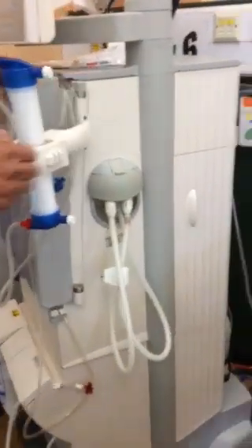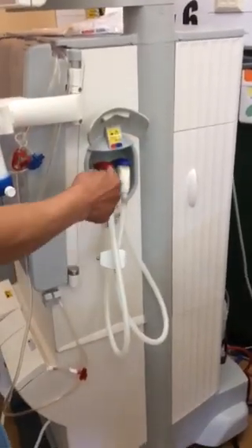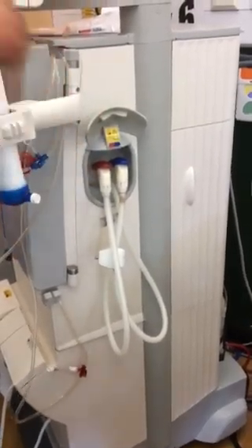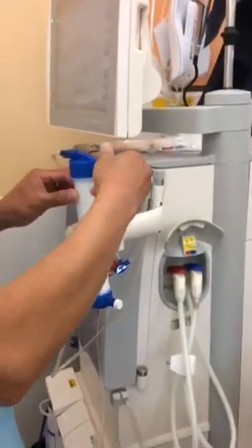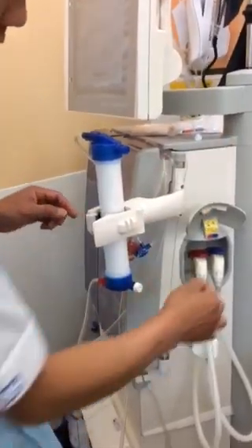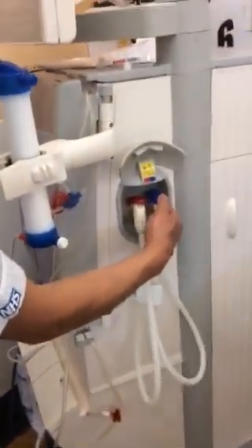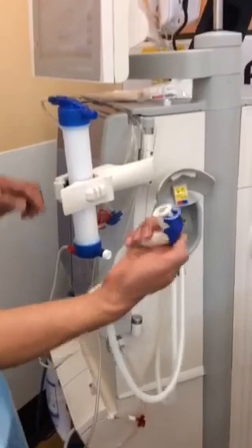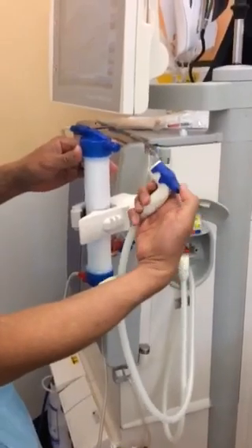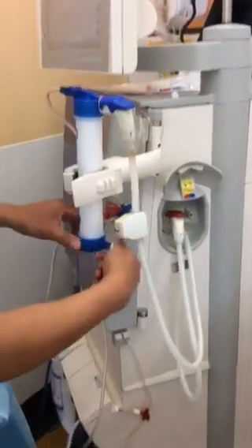Now I'm going to put the hands on, because now it's ready. You will see this sign here. When you see this one, that means it's ready to connect to prime, to be primed — prime the machine. Now pick it up — the top end. Get the red to the red, or blue first to the blue. Take this one out, press the top, cover. Just save it for later on. This is blue, so I need to get the blue. Just press it from here when you take it, and then just keep pressing, like that. And then put it. When I put it, just press it. If you don't press it, it wants to go down. It's locking.